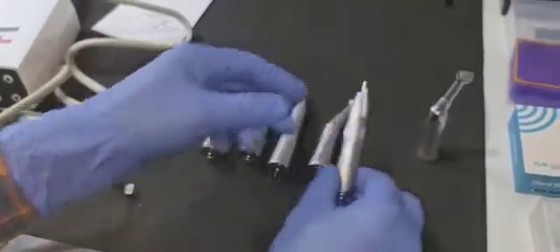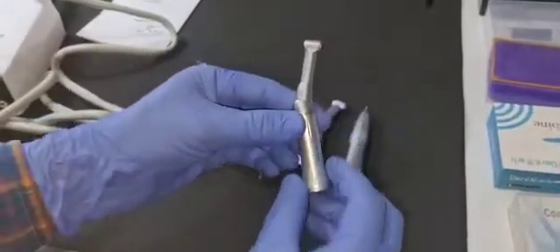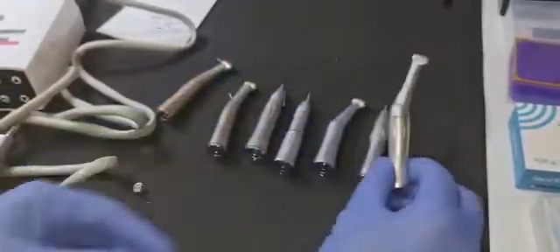And here is the 16 ratio 1 endo handpiece. All these can be used with the motor.